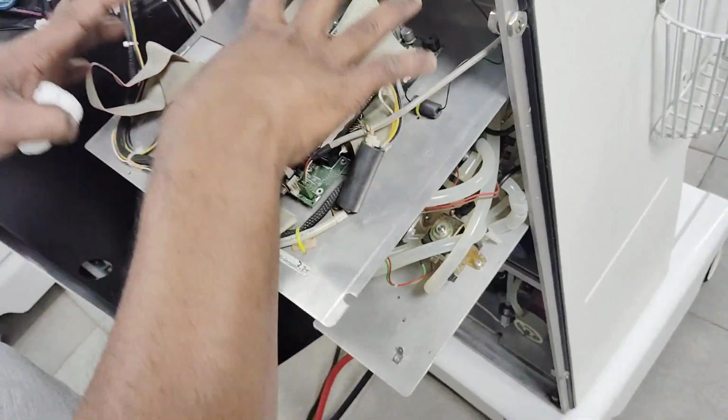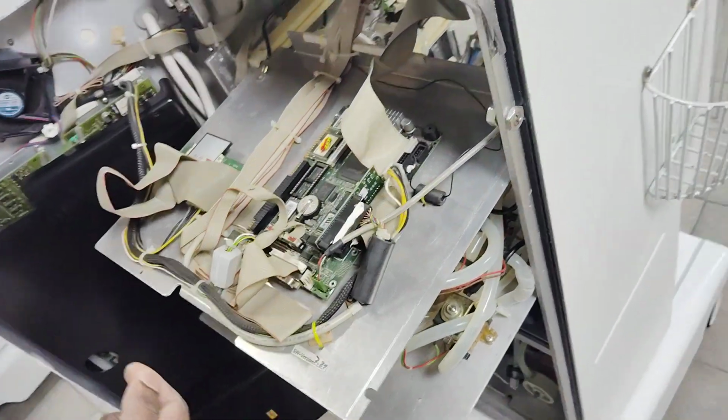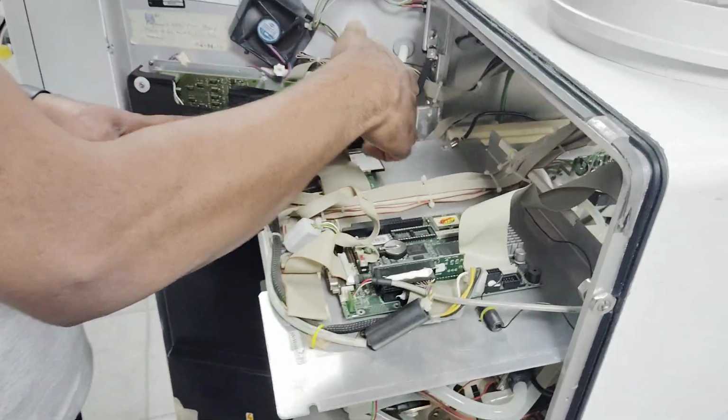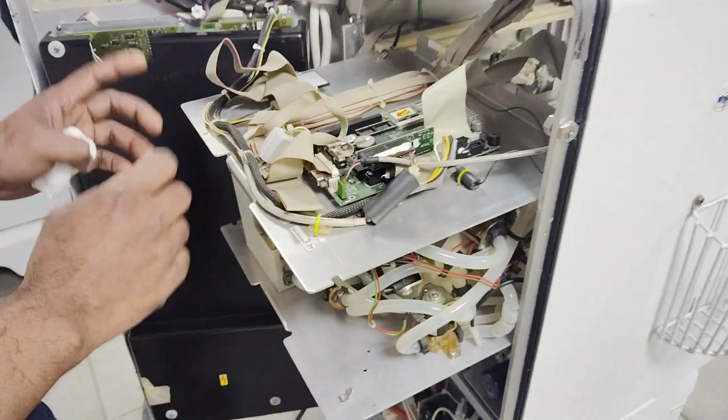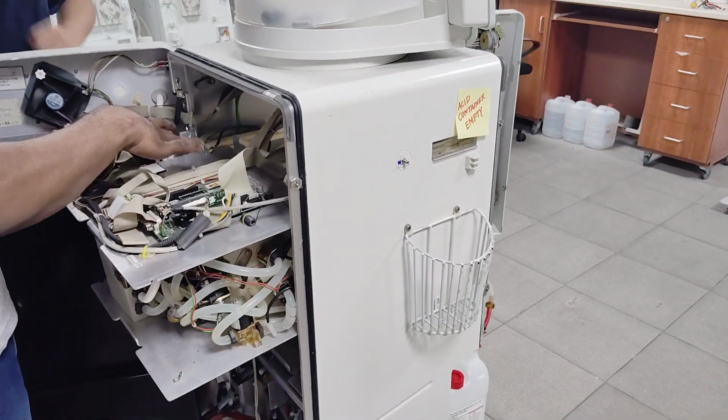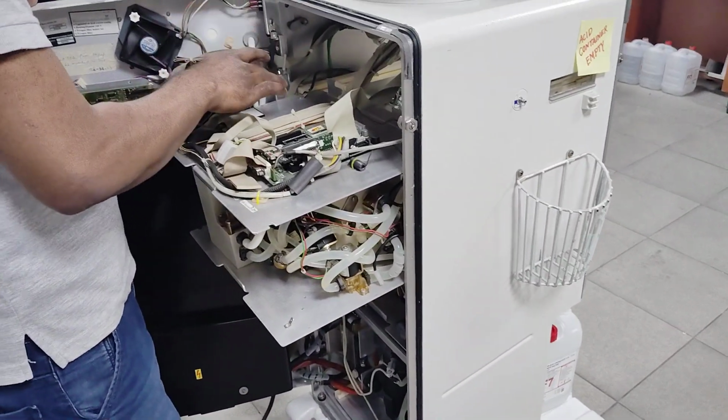So no need for this part. Only the motherboard and the integrated flash card will be there. So here, we buy the adapter separately and try to assemble that as per this. Okay, so this is our card holder, and this is the flash card.